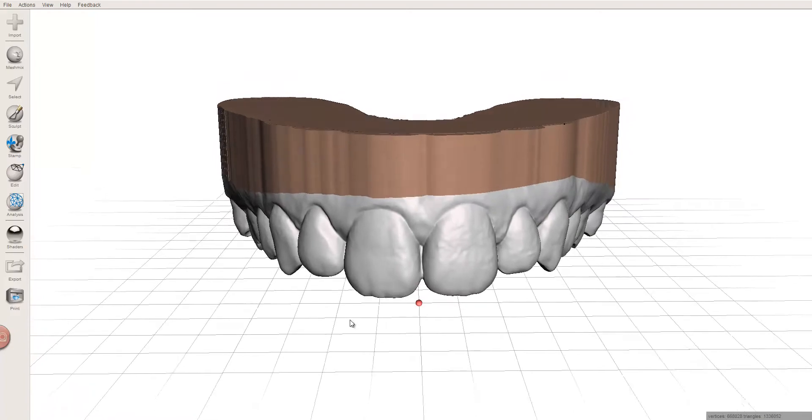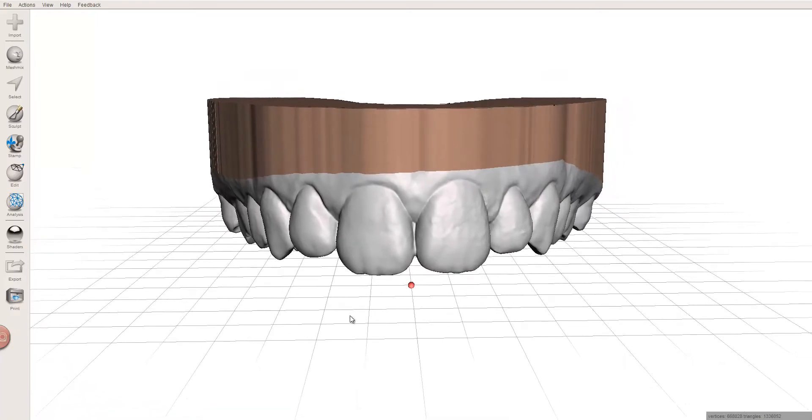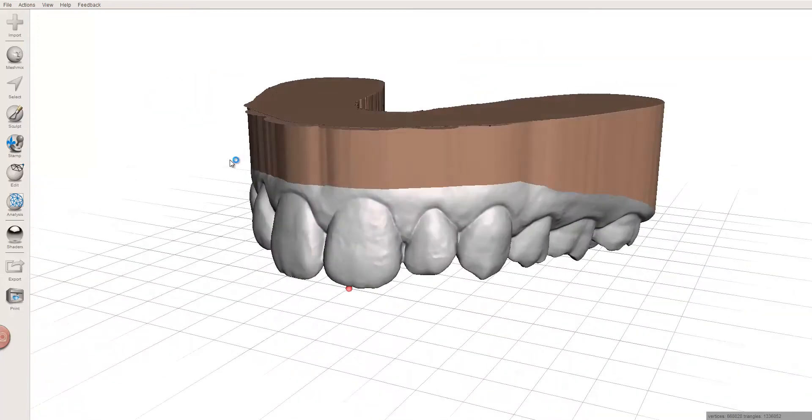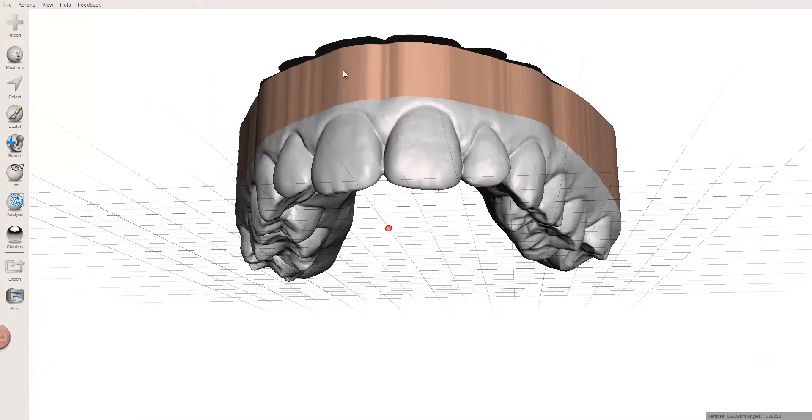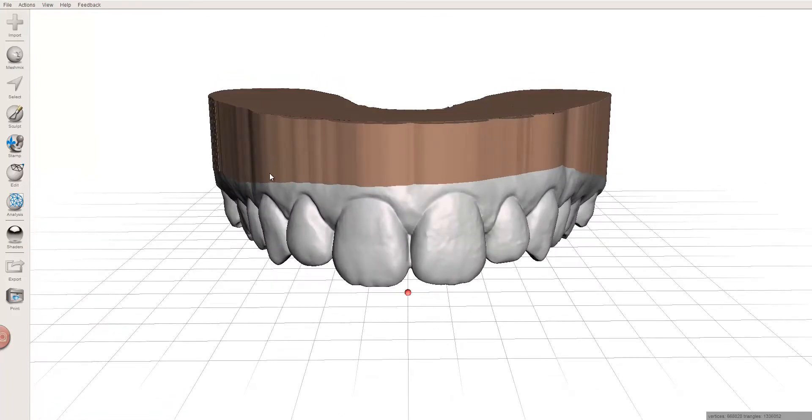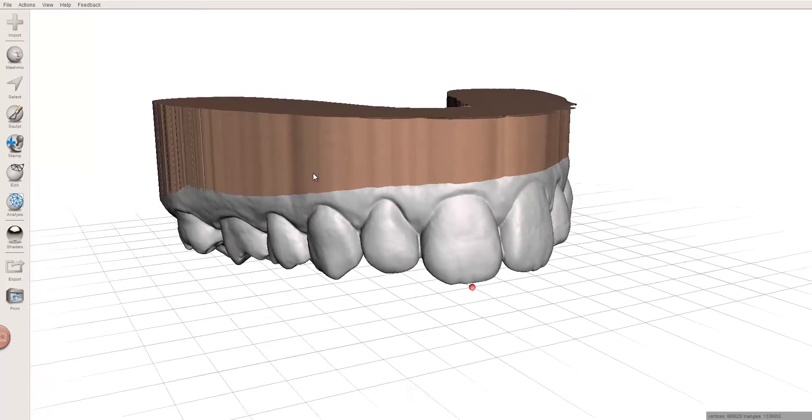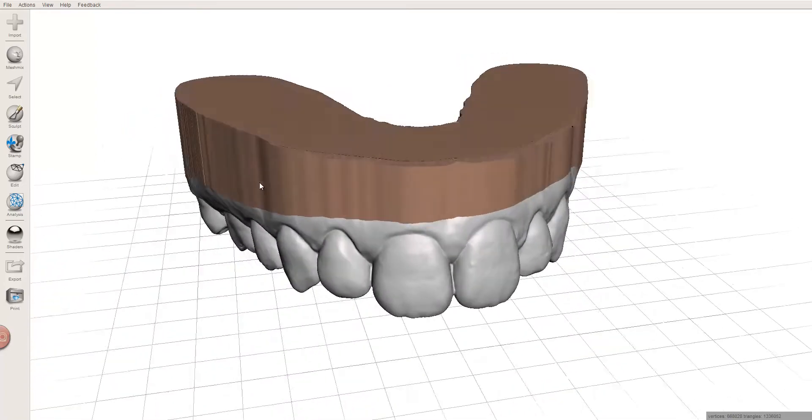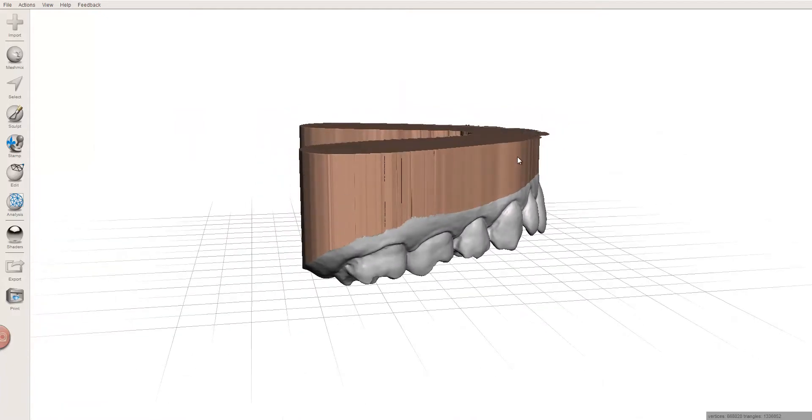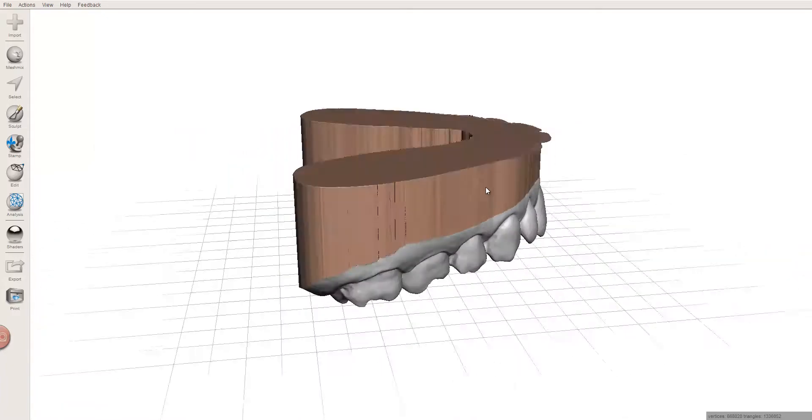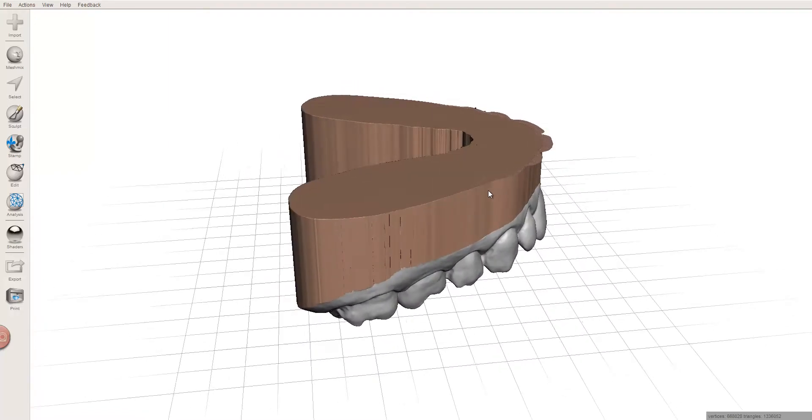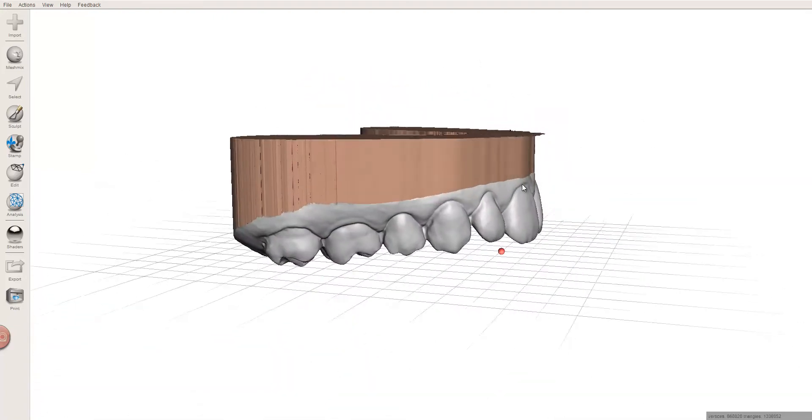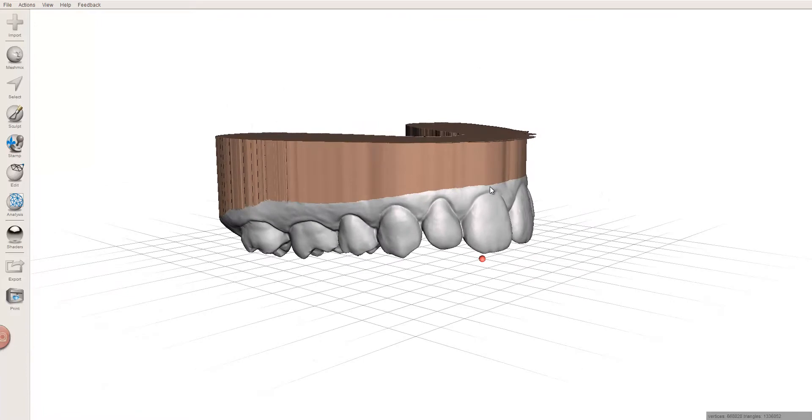So basically one of the things we do when we're basing models - I've added a base here, and I'm eventually going to cut it, I'm going to shorten it, get rid of this little flange here. I've extruded over more than I need to, I'm going to trim it down. You can hollow it, and that's not something you have to do, but generally speaking, I'm a big advocate of vertical printing, which requires us to put a plane cut in the back, on the distal end of it, and that is one of the longest steps. It's very simple in what all is going on, but sometimes for the computer to process it, it can be a struggle.